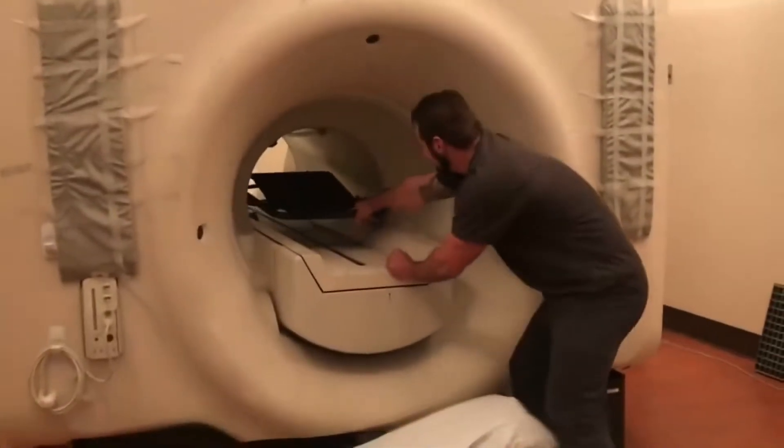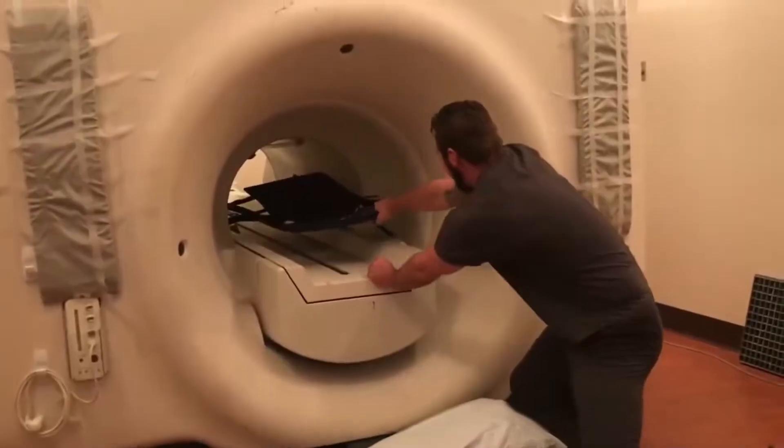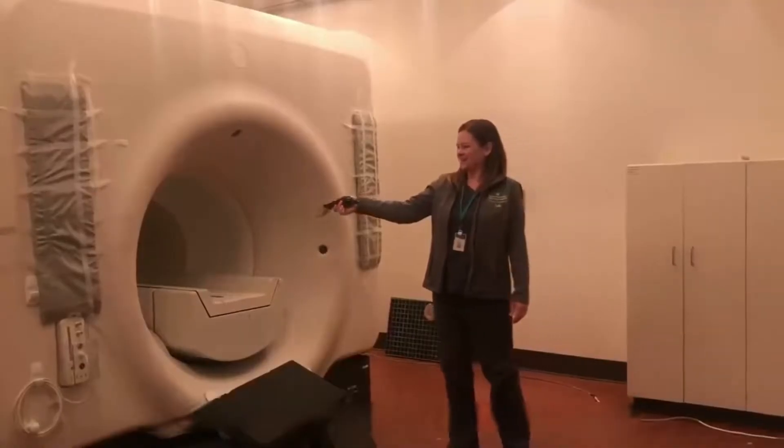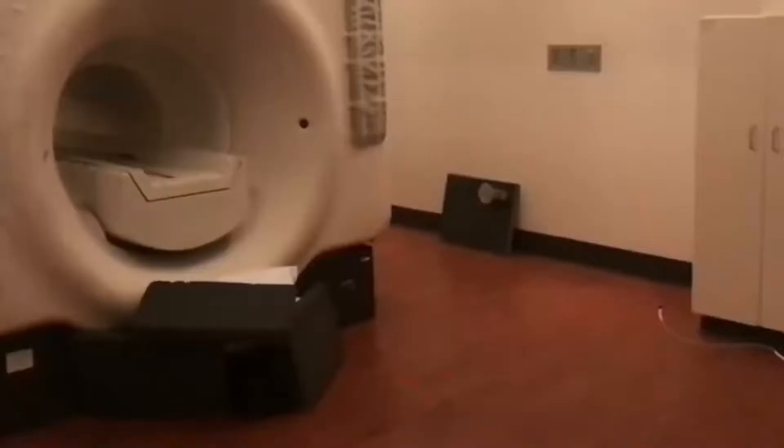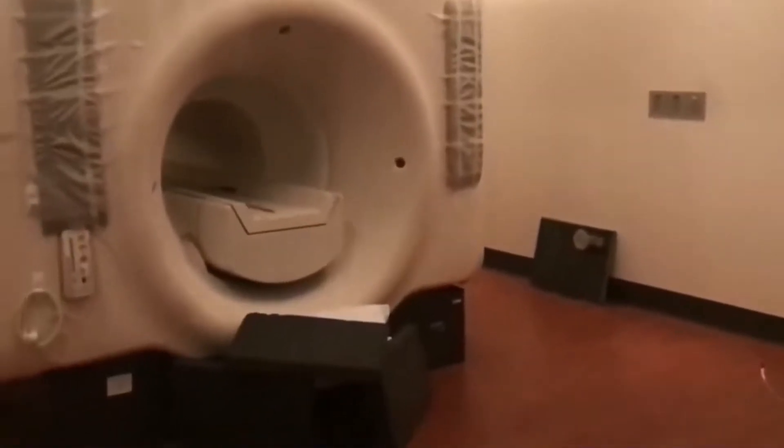That's why you can't wear metal in an MRI. Throw a stapler in there and it's quickly attached to the inner wall. Throw a metal rod in and the suction is so strong it'll flop around inside.